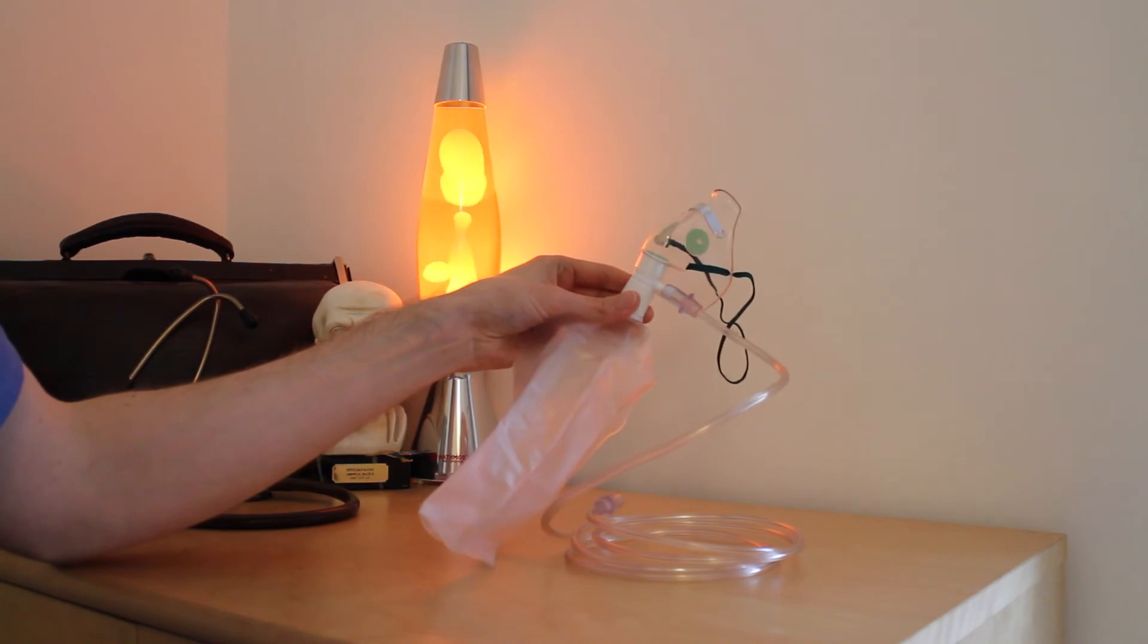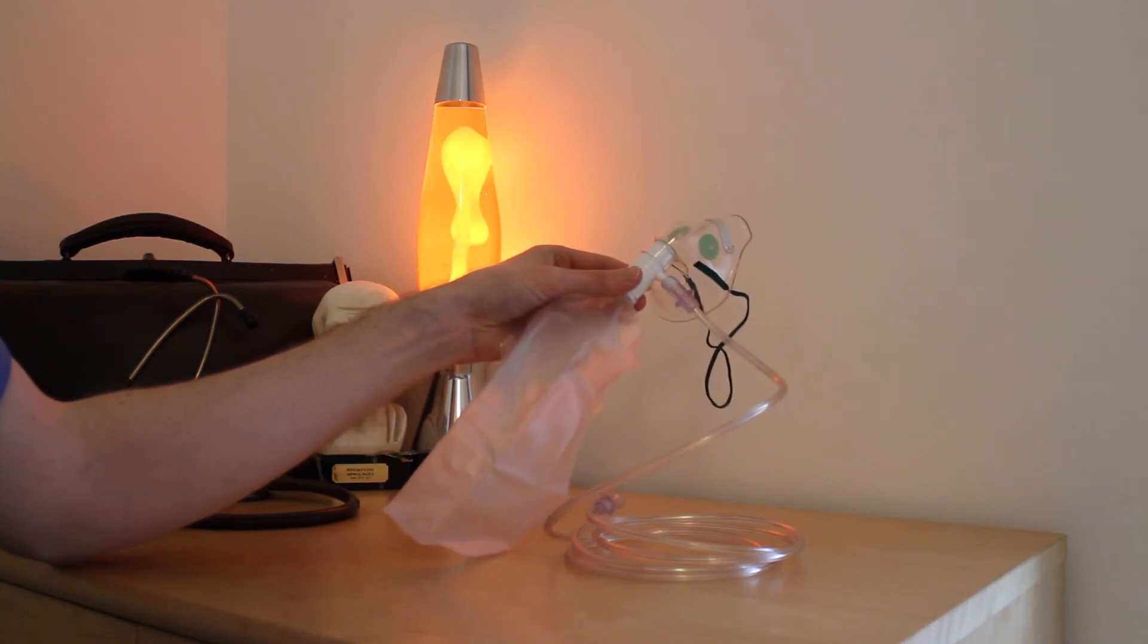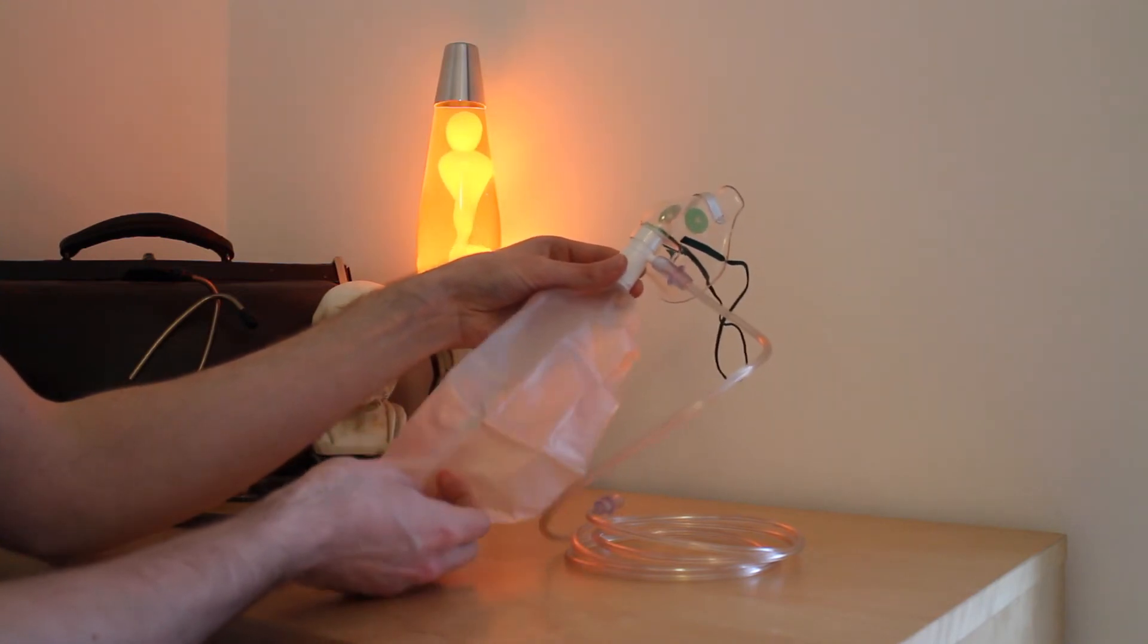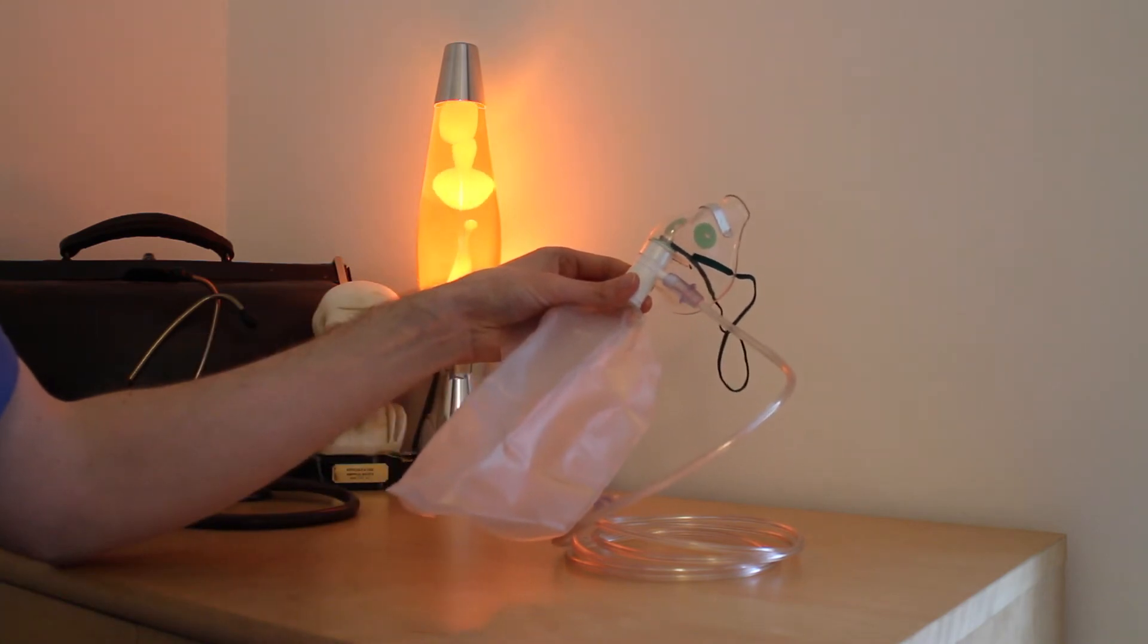Indications for its use include oxygenation of patients in whom you suspect to be hypoxic. Contraindications to its use include patients who are intubated, as naturally you should connect the oxygen supply to the ET tube.